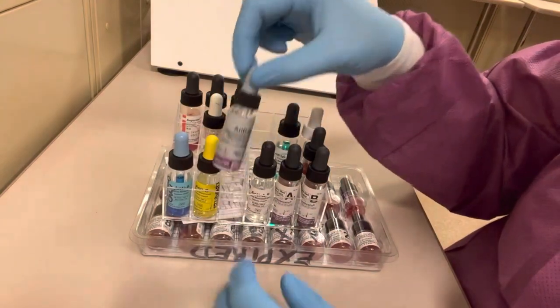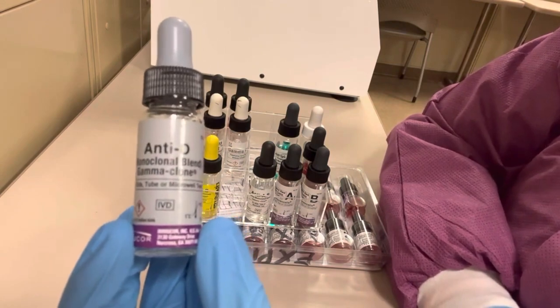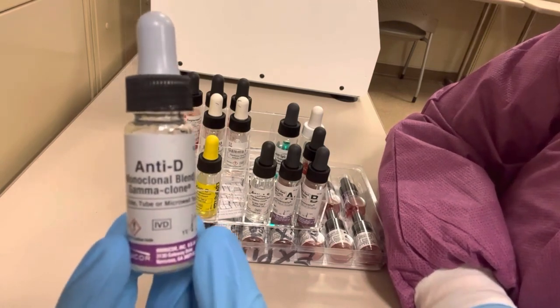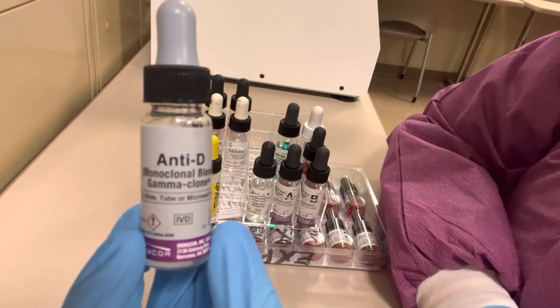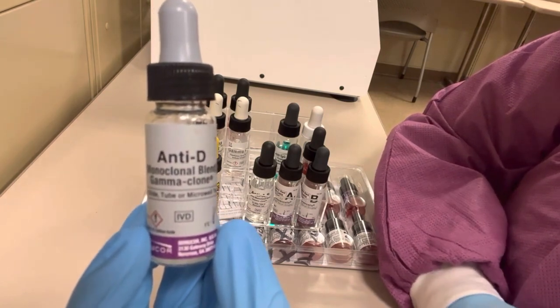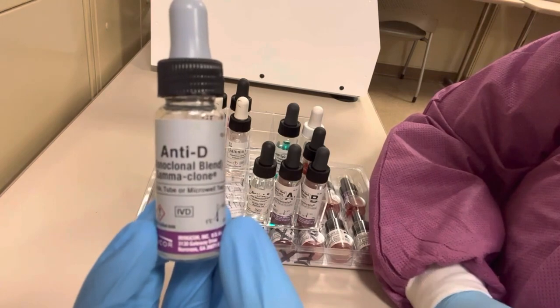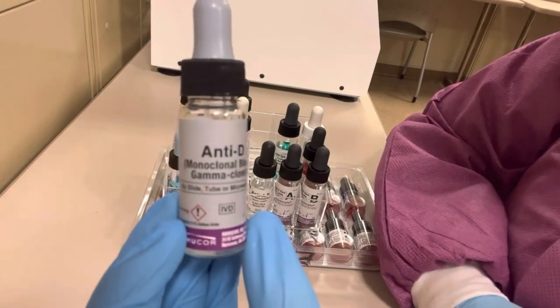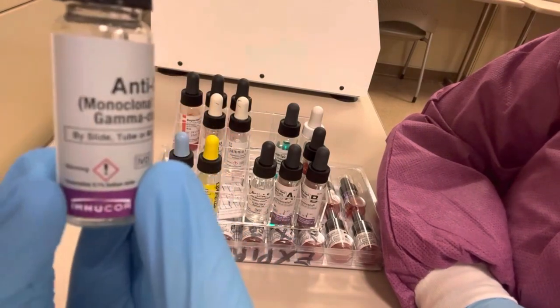Anti-D reagent is also used in the forward or front typing of the ABO blood typing procedure. It contains antibodies towards the D antigen and determines a patient's Rh status. If the patient's red blood cell suspension agglutinates with this reagent, their red cells have the capital D antigen and they are Rh positive. If it does not agglutinate, they lack the D antigen and are Rh negative. Anti-D is always clear in color.